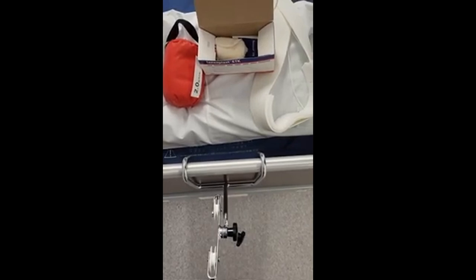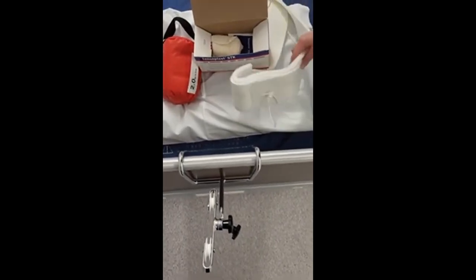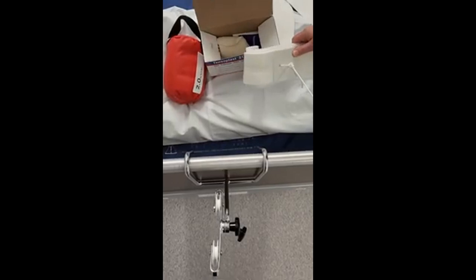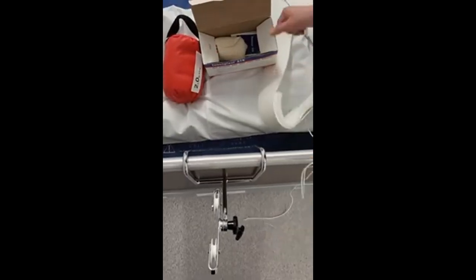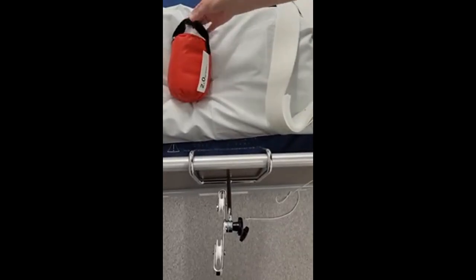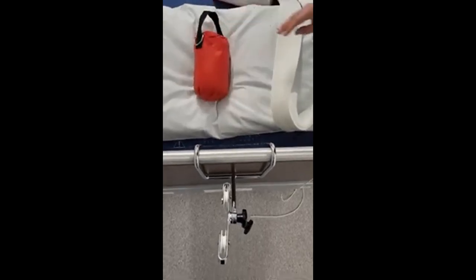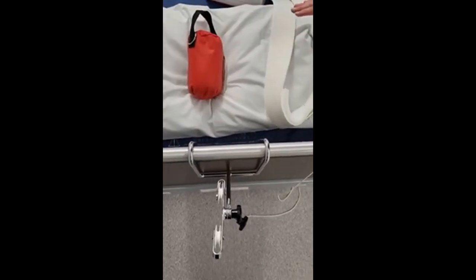Equipment needed for straight leg traction for a fractured femur. You've got your traction kit, with the thread pulled through so you've just got one string to go through the pulley of the swan's neck. You've got your bandage and your weights, which are prescribed by the doctor, usually around 10% of the patient's body weight. You've also got a pillow, small blanket, or pad to support under the leg.